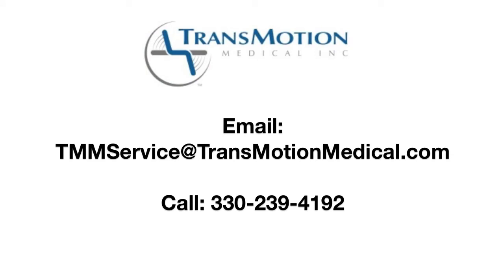This concludes the control box replacement. Thank you for taking the time to learn the proper steps on how to replace the control box. If you have any questions or would like further clarification, please contact the TransMotion Medical Service Department.